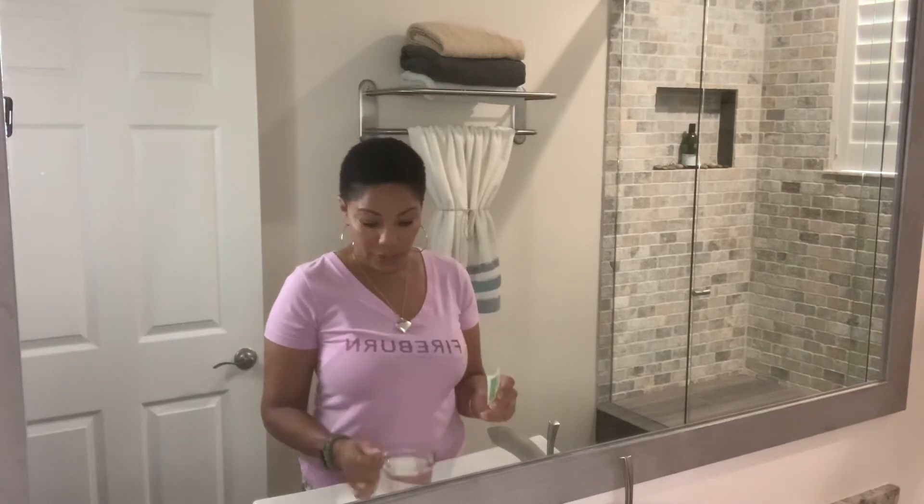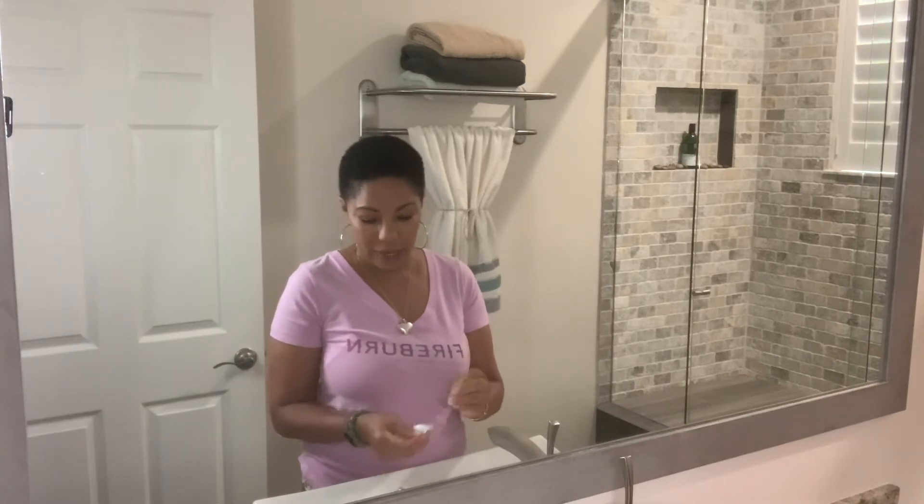I have a cup of warm drinking water. I found that it feels better in my sinuses if the water is just nice and warm. If it's cold it's like brain freeze, and if it's too hot it's just going to burn. I'll take one packet of my mixture and put it right in here and mix it up.